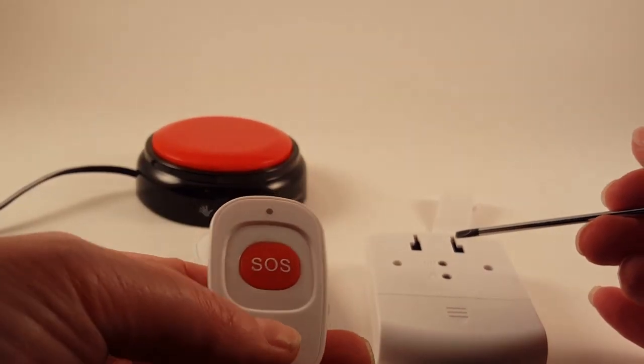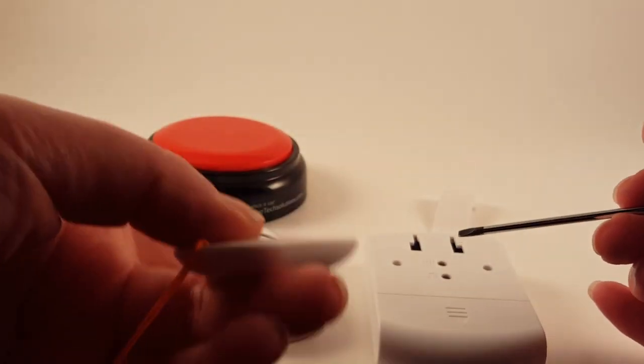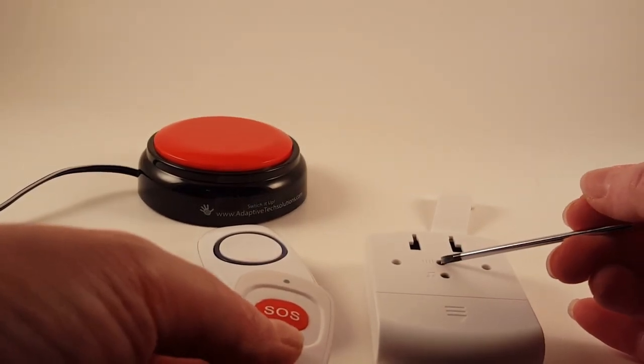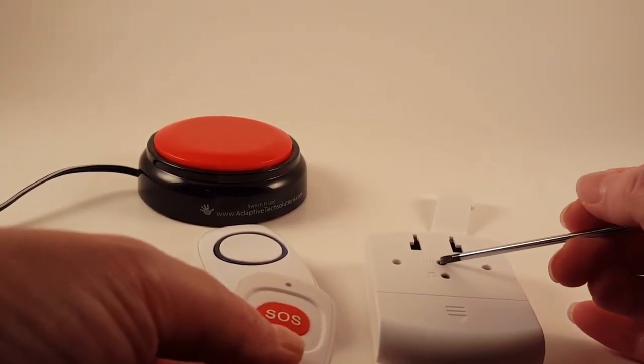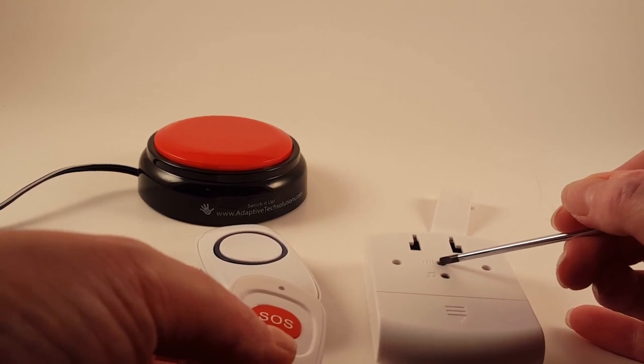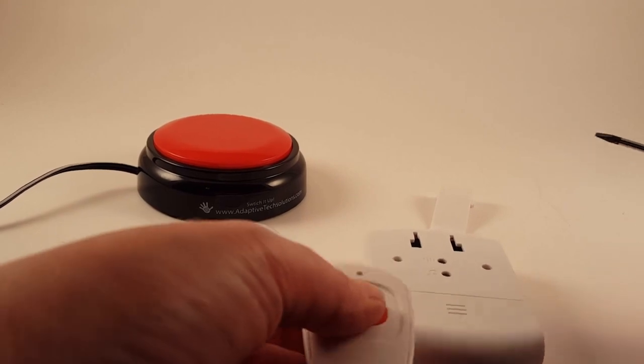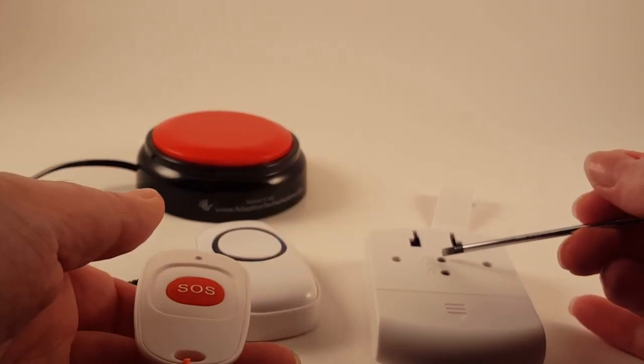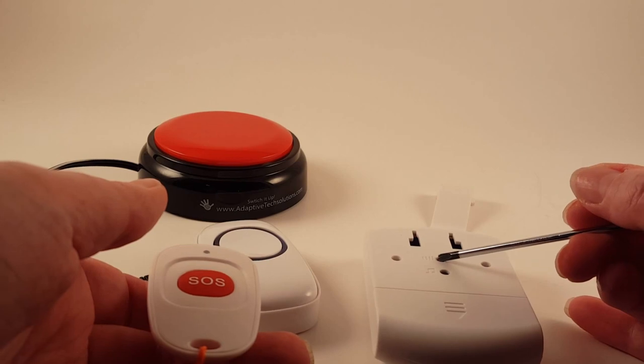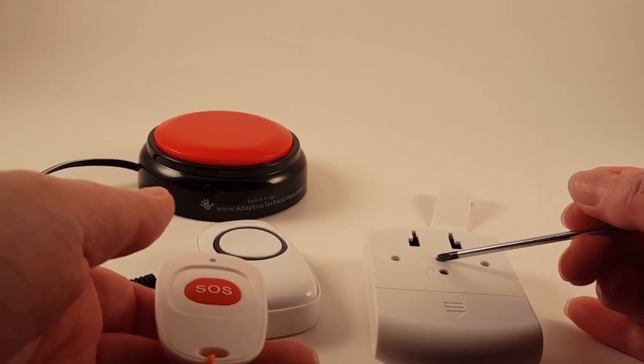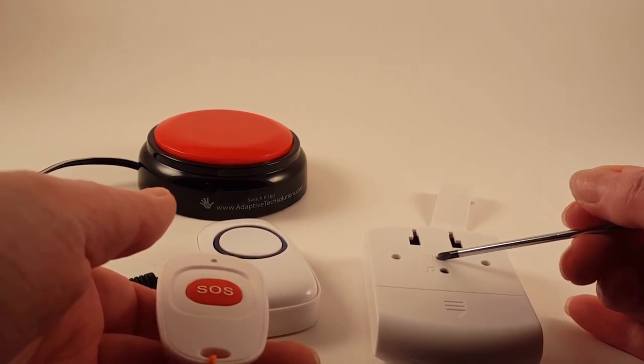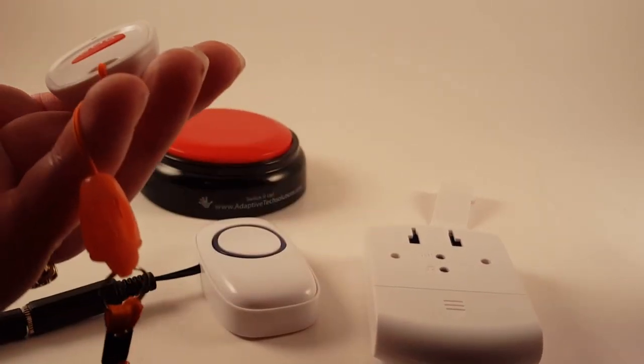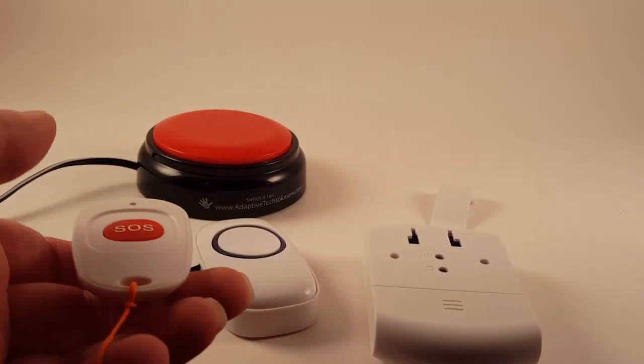I'm going to do this one, but it's the same process for either one. So you'll hear the chime here in a second, and I'm going to be holding this down the whole time. Okay, so now I'm ready to pair, and now I'm going to hit this again. And now I'm paired up, and so it's that simple.